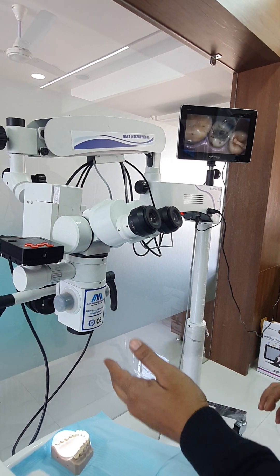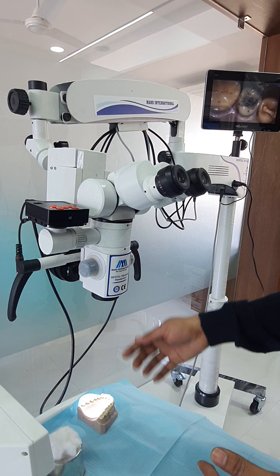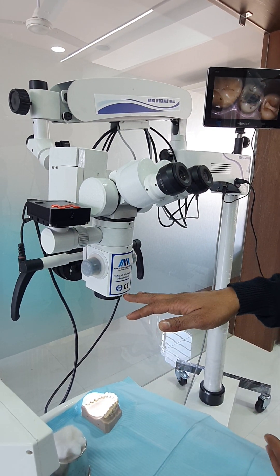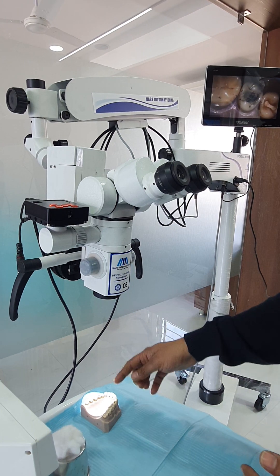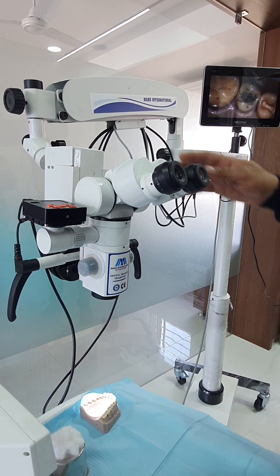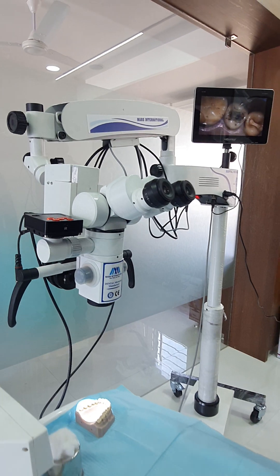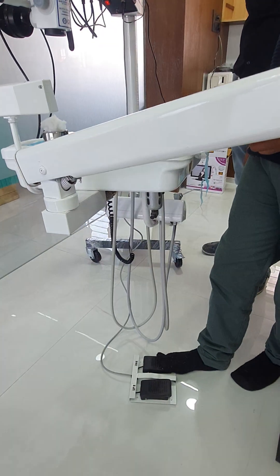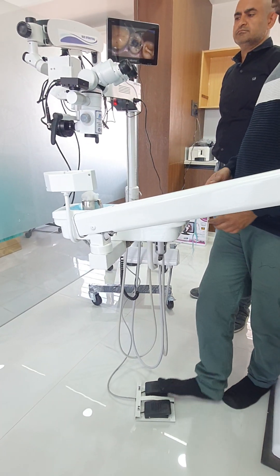The second step is to adjust the working distance. This is a 250mm working distance lens, so you can position the lens at 250mm. It also has a motorized foot control system — you can change the focus through this for the 5-step focusing system, moving up and down.